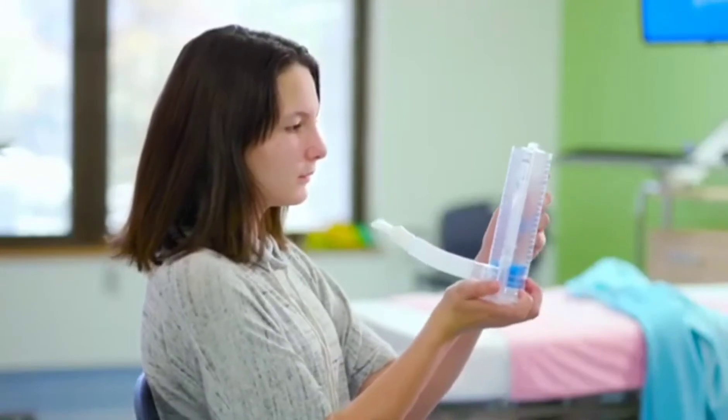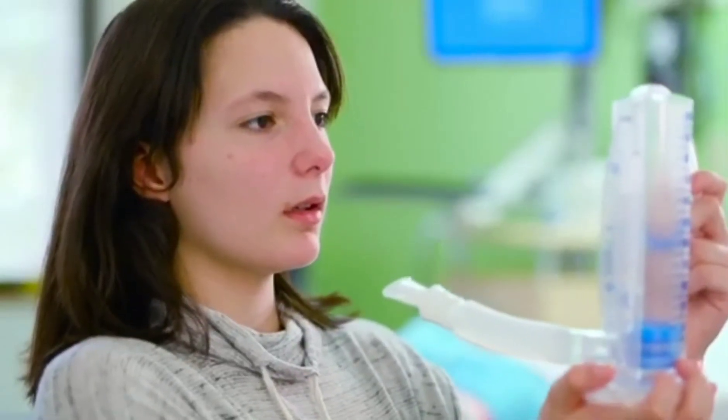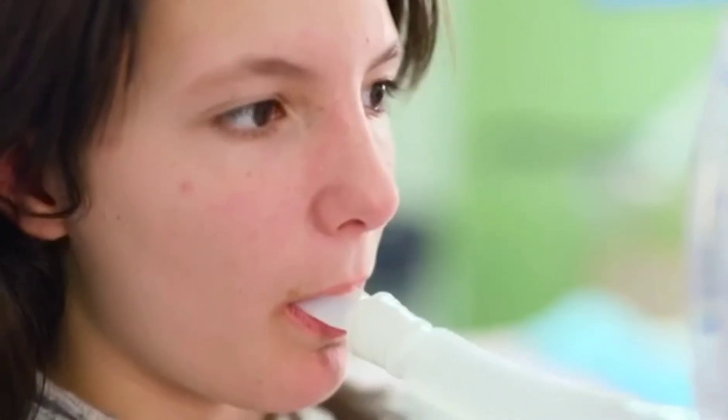Sit up straight and hold the spirometer in your hands. Take a deep breath in and let it out. Place the mouthpiece in your mouth. Make sure your lips completely cover the mouthpiece.